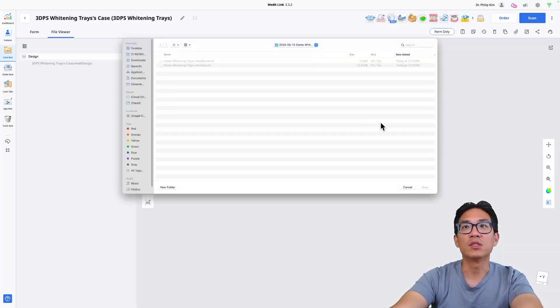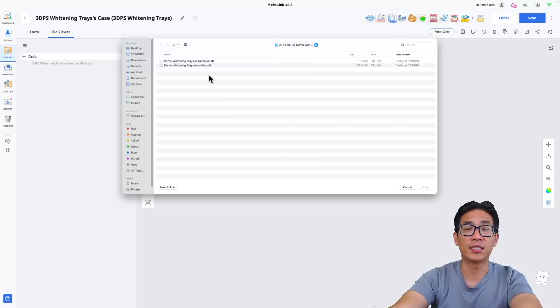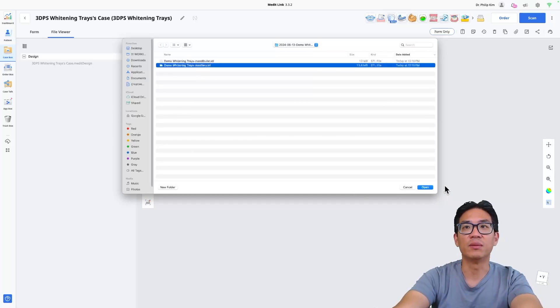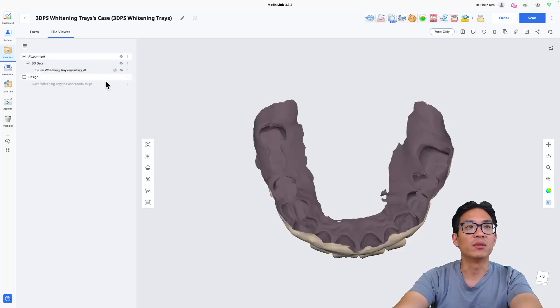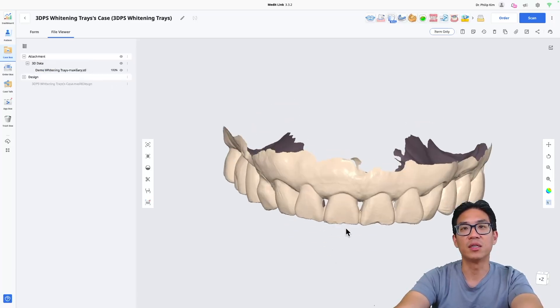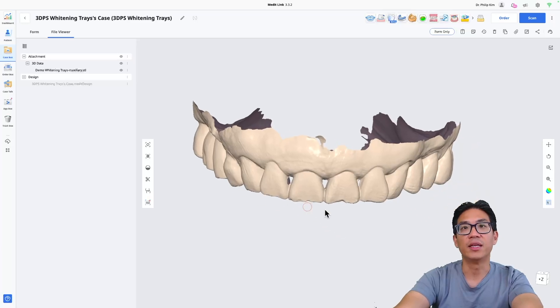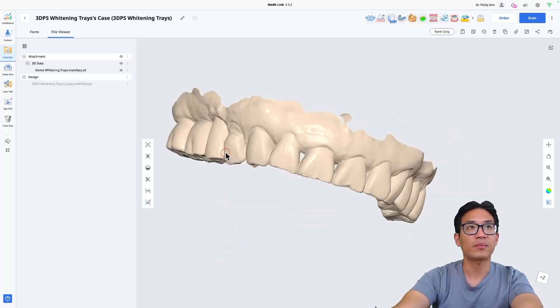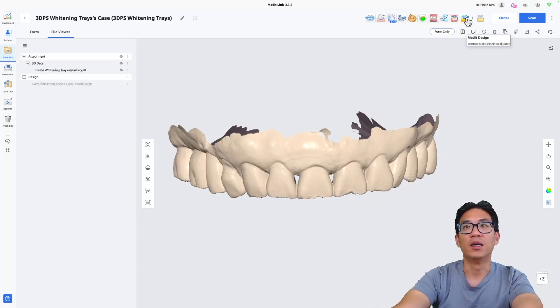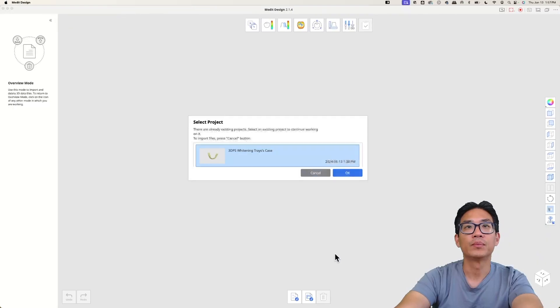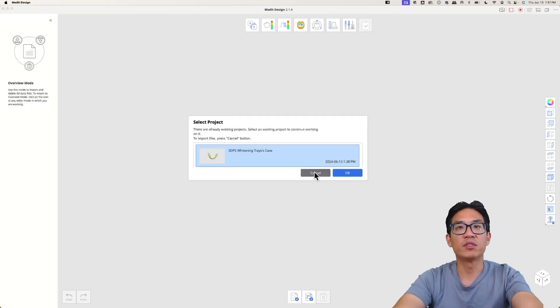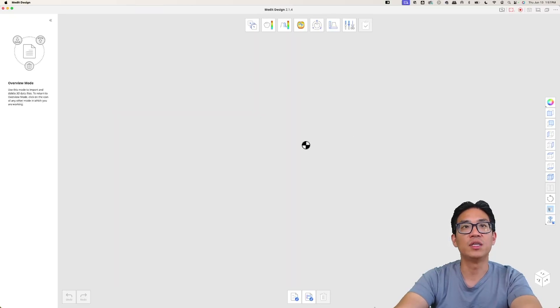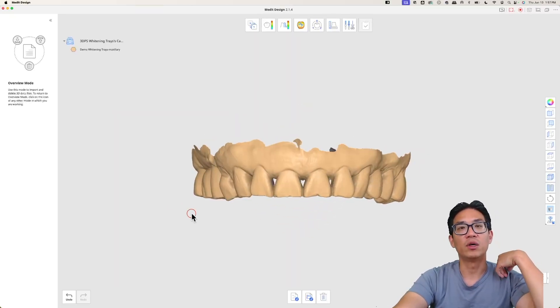You just need to hit attach. Once you make a new case and you hit attach, for the purpose of this video I'm just going to do the maxillary, but obviously you can do the same for the mandible as well. This is just an intraoral scan STL that I imported into the Medit Link software. From here now you hit Medit Design. There was a previous project but I'm just gonna hit cancel and do a new one, and then choose the STL file I want.